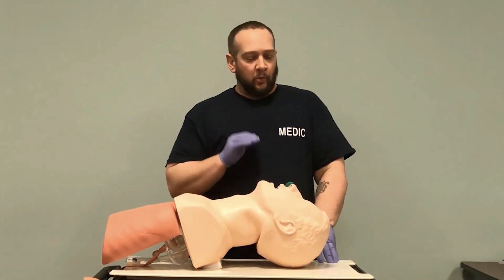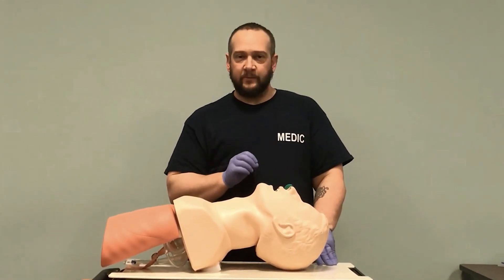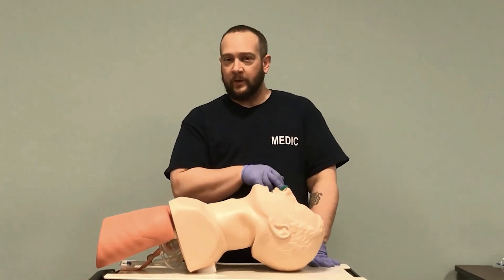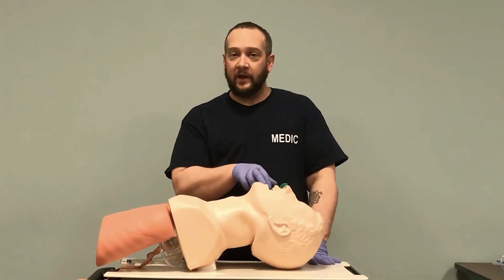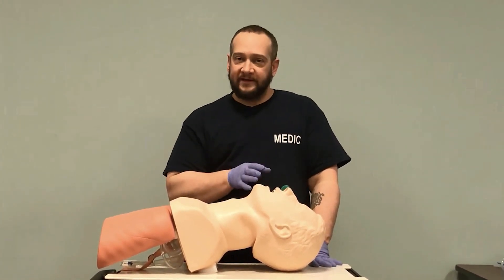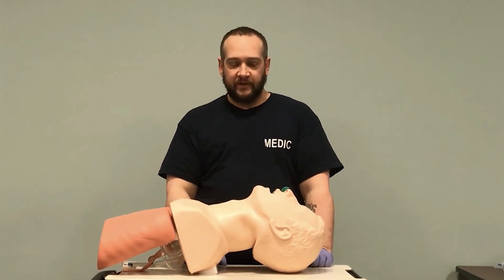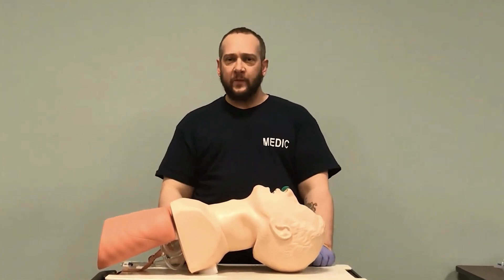When it comes to airway management, we have to do whatever we need to manage the patient's airway. If we lose the airway, we lose the patient. If I need to use two NPAs, I can. If I need two NPAs and an OPA, I can do that. If I need two people on the airway, that's what we're going to do.